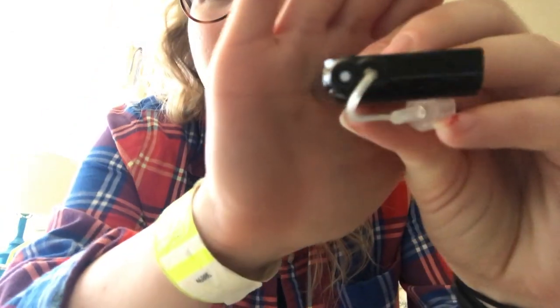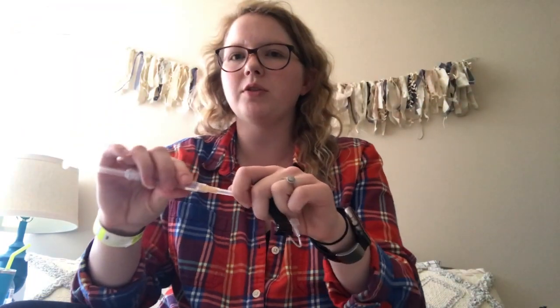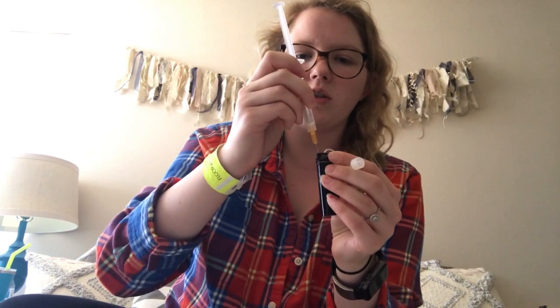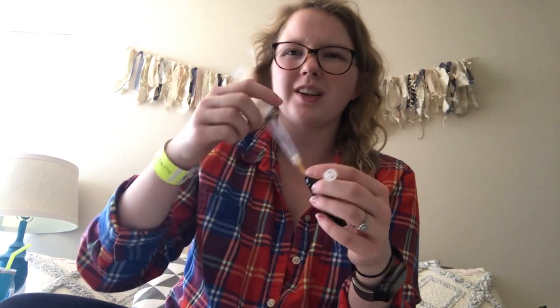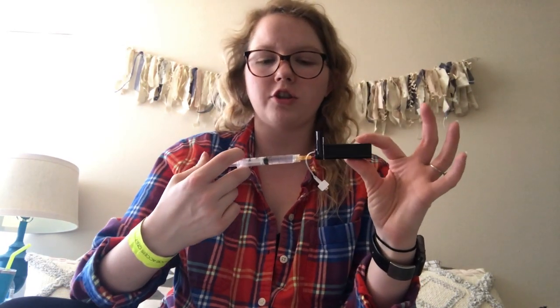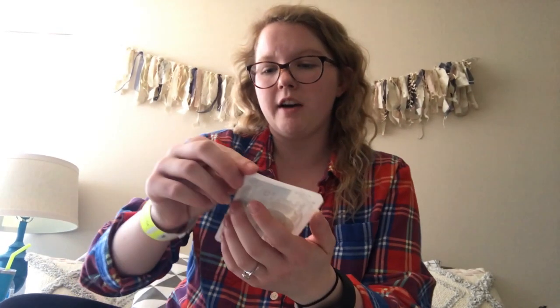I'm going to take the syringe that we just filled with insulin and put the needle into the white rubber stopper and push all of that insulin into this cartridge. Now we have the site itself — it has the 23-inch cord right here that connects.